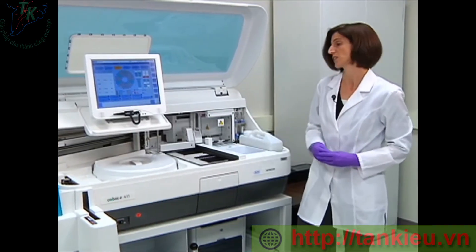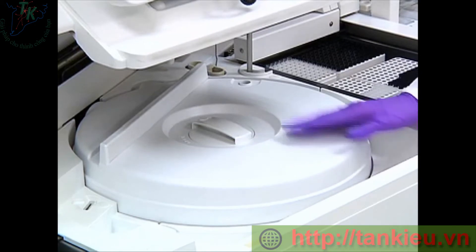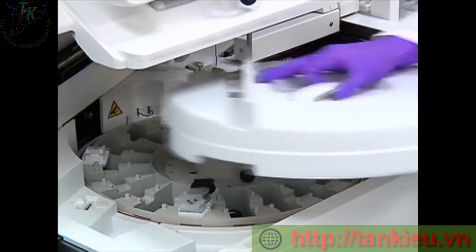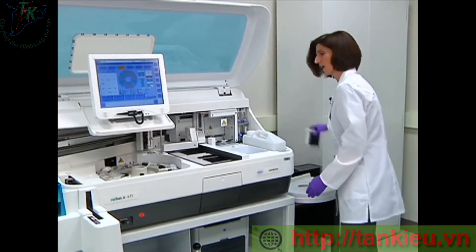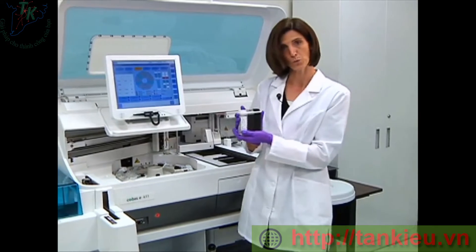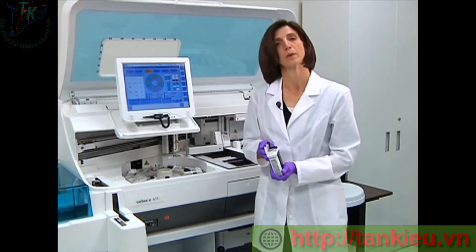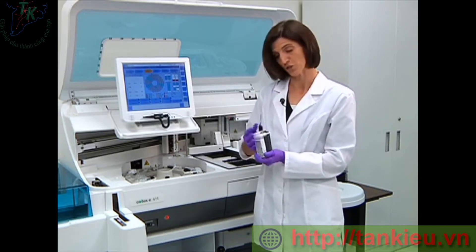Now I'm ready to load the reagents. So the reagent compartment is located next to the cups and tips, so I will unlock the reagent compartment door and lift the lid off. I then take my reagent that is warm to room temperature, open the caps, and visually inspect for any bubbles. Then I will close the caps to the first stop.